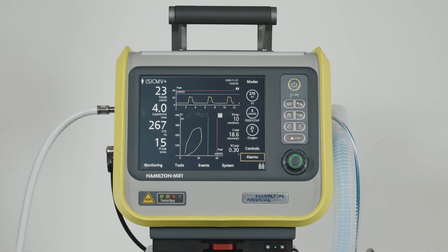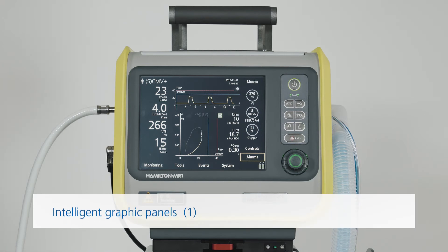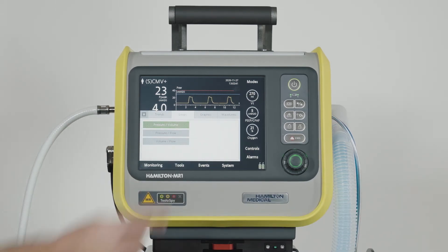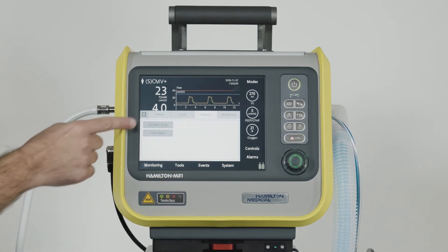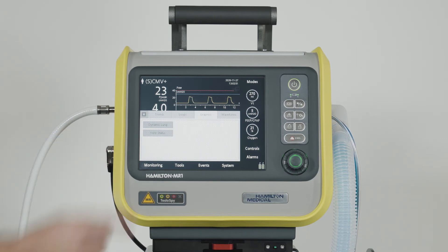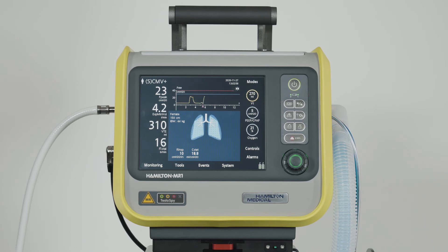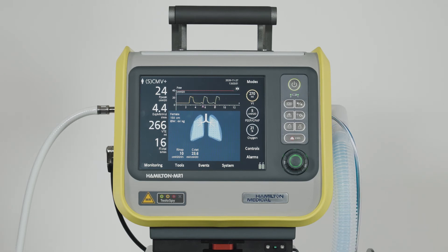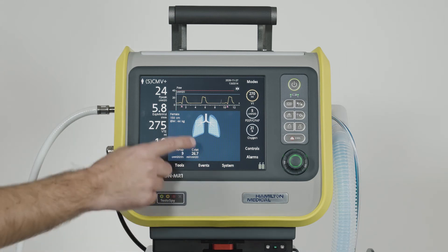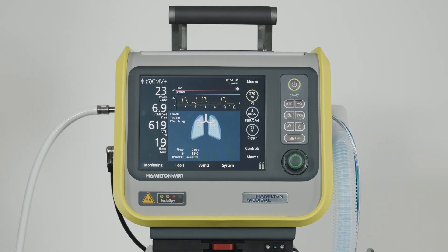To make it easier to interpret all the different information, we've combined the clinically relevant patient data in dynamic representations. To display one of these intelligent panels, touch anywhere in the graphic area, then touch the Graphics tab, and select the panel you want to see. With just one quick look at the dynamic lung panel, you'll get an idea in real time about the tidal volume delivered, the respiratory system compliance, the airway resistance, and patient triggering. Instead of having the different pieces of information presented separately, you can see it all combined in one moving lung graphic. The lungs expand and contract in time with the patient's actual breaths, and when all the values are in a normal range, the panel is framed in green.